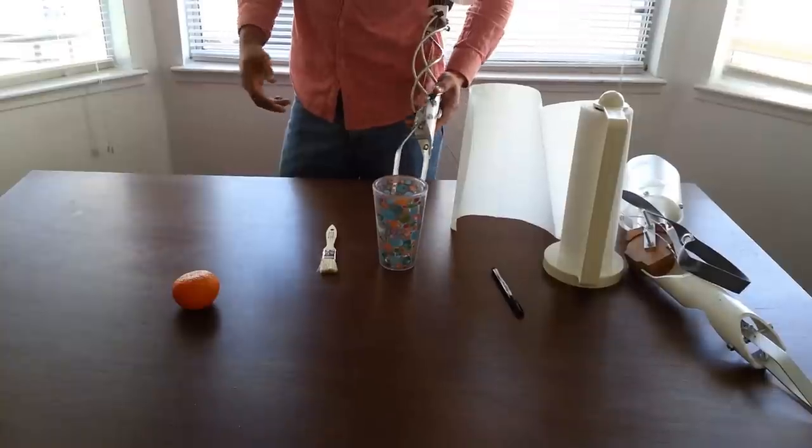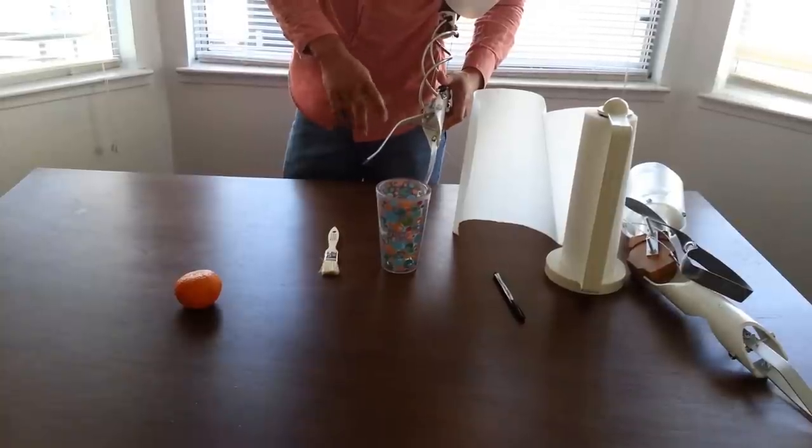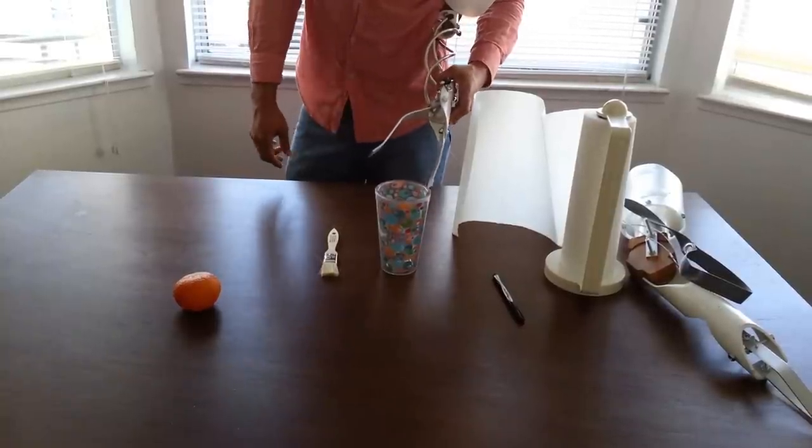And then it's set up the same way. It has a little cable running through here that pulls the grasping mechanism open and close.